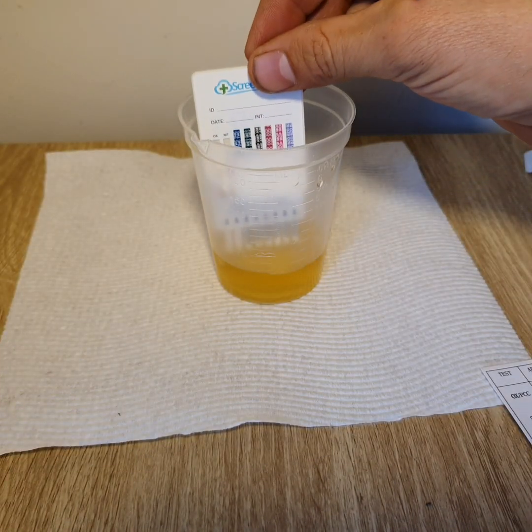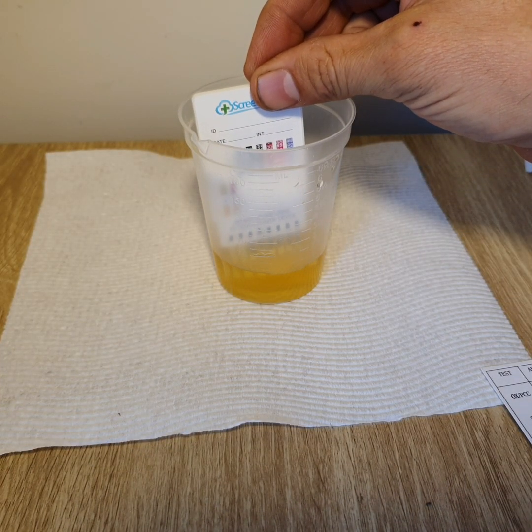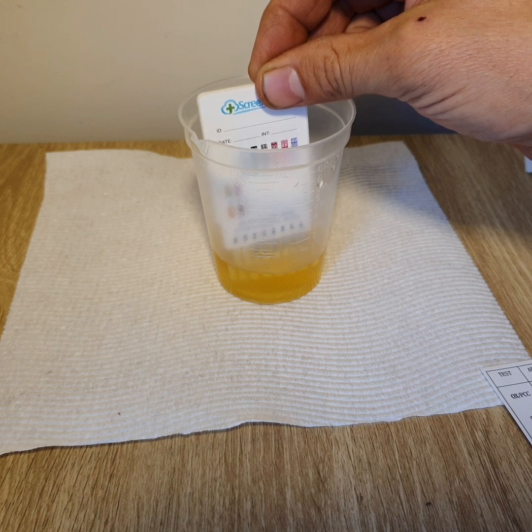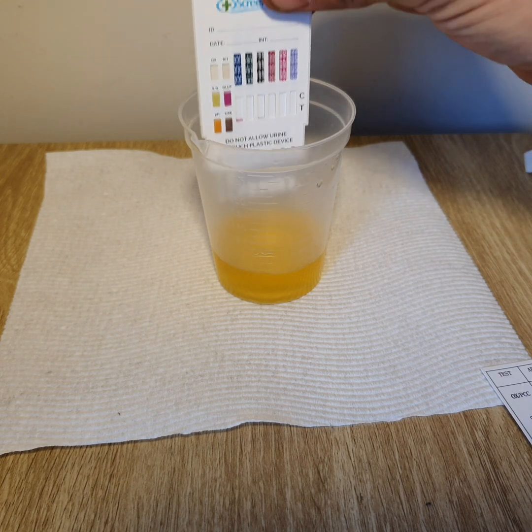So let's go ahead and dip the absorbent ends into the sample for about 10 seconds, or however long it will take to migrate up the strips. Keep in mind never to dip past the plastic cover.